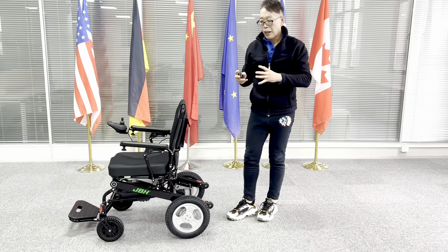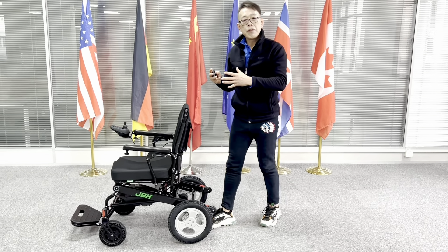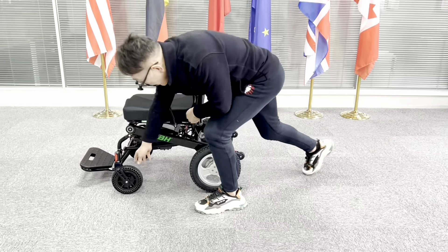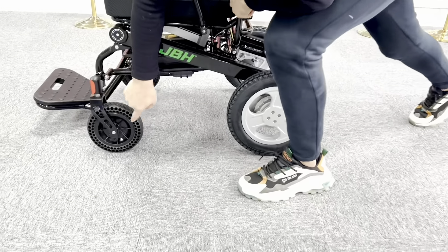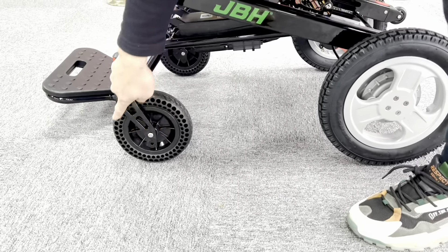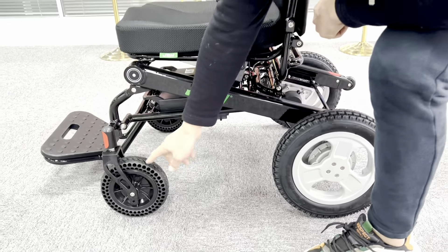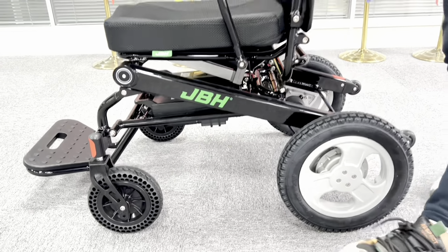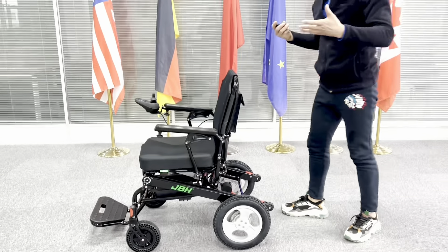If you want to go out, it's a lot easier and really comfortable because the wheel size is a lot bigger. The front wheel has a hole design here, obviously you can see. These are a shock absorber function that allows you to have more comfort.